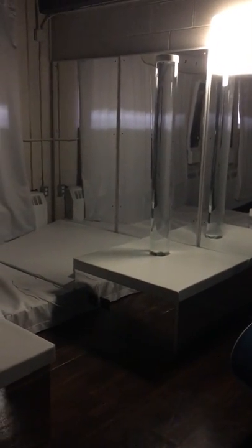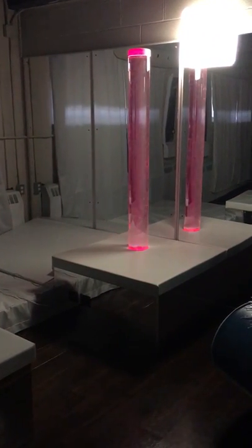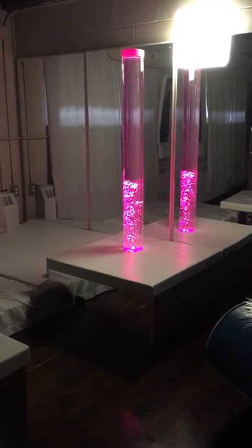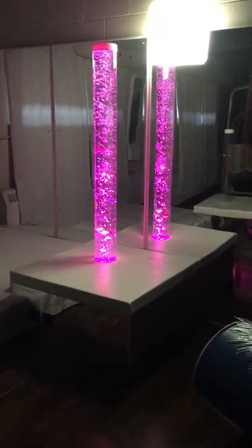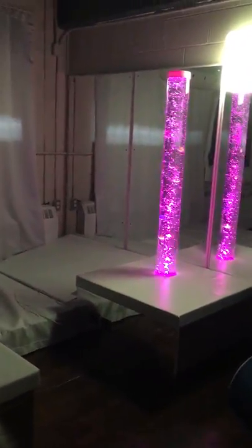The white pad sits on top so that anybody can sit on it, and once you've plugged it in it easily comes on. It starts off at magenta, the bubbles come up the top — I'm going to turn off the extra light so we can get a better visual. You'll have your fish that you can take off and put inside of it.